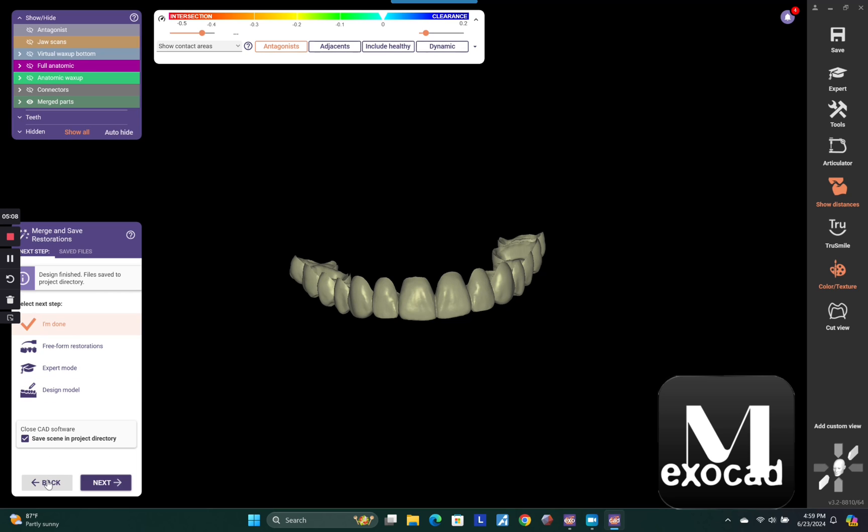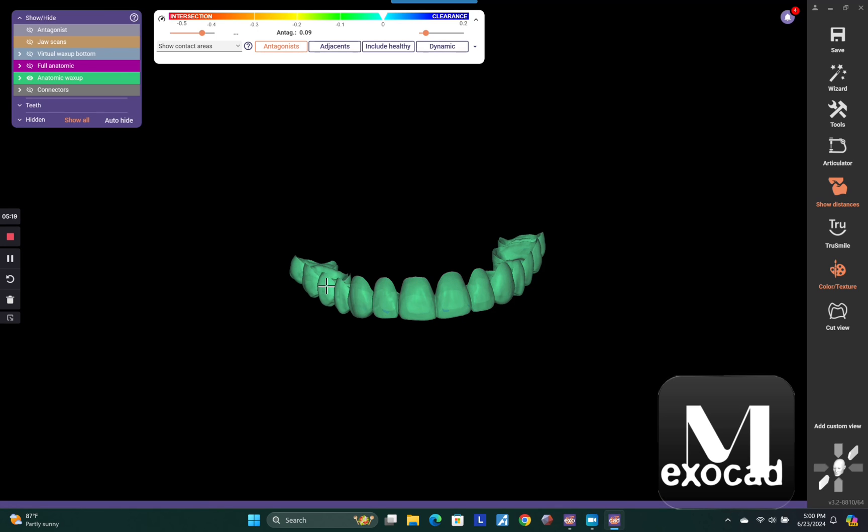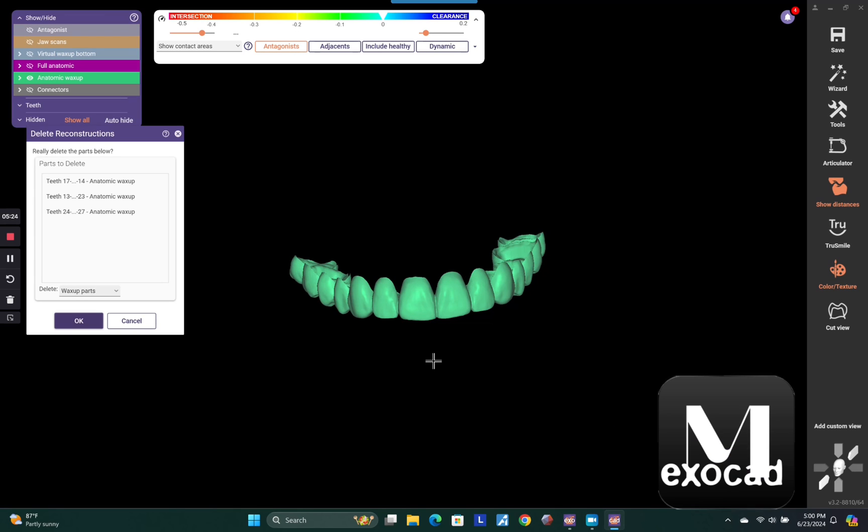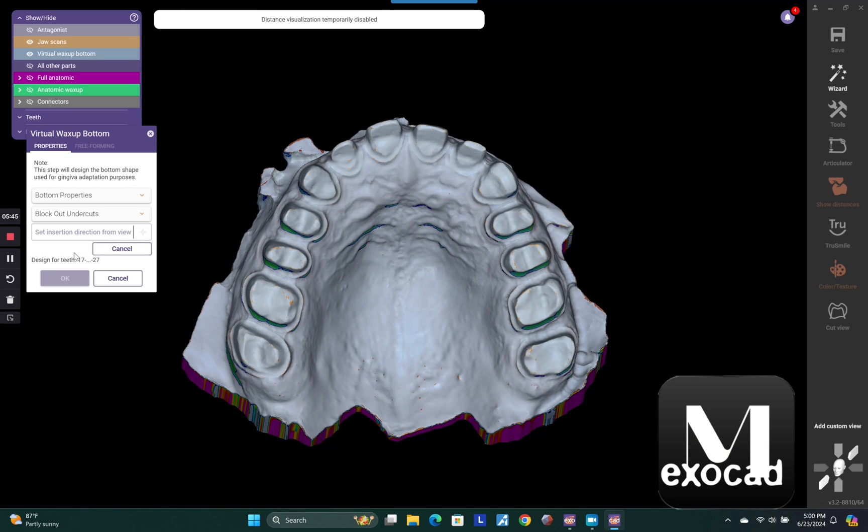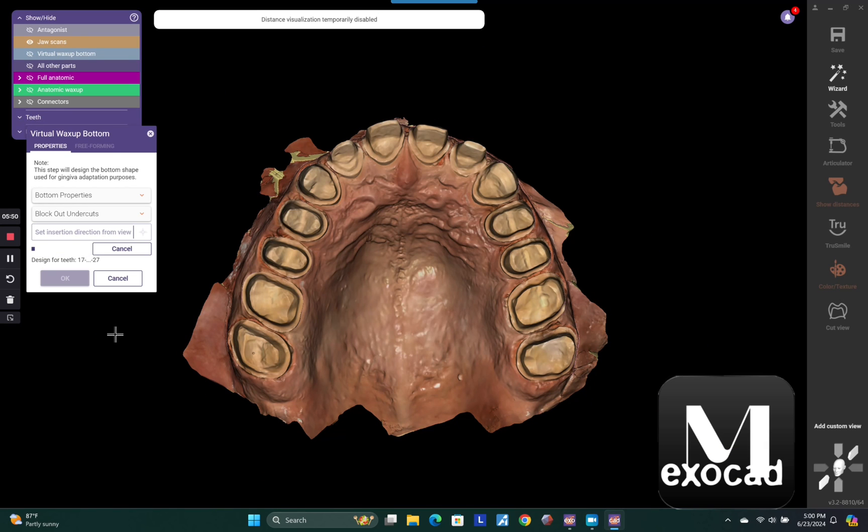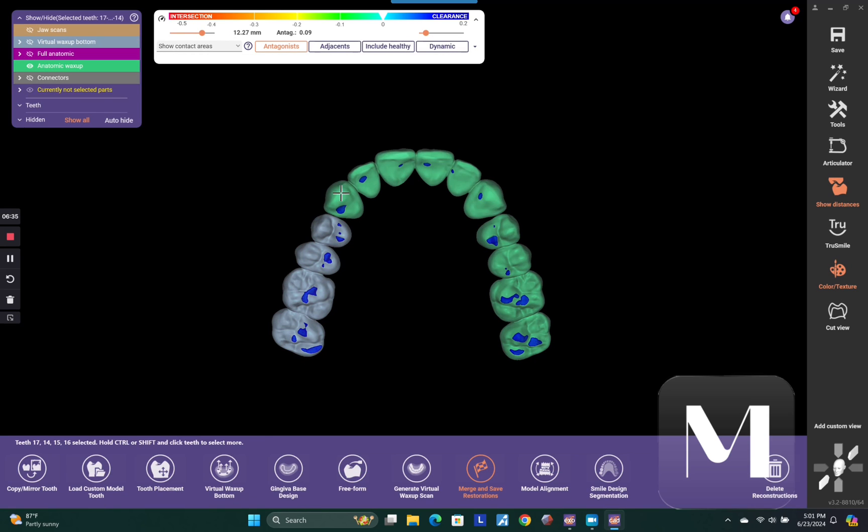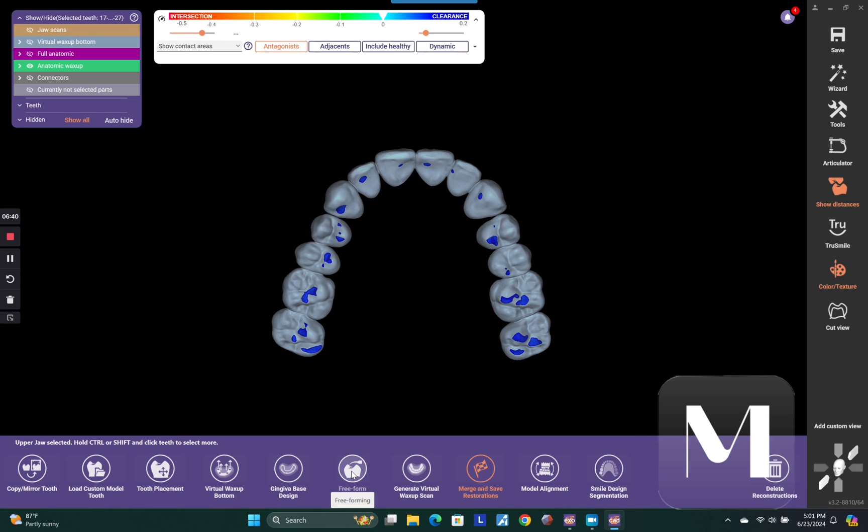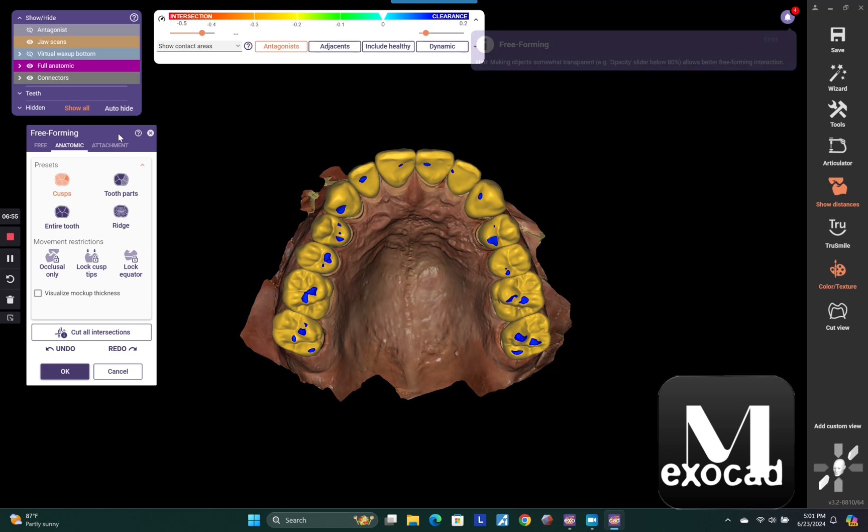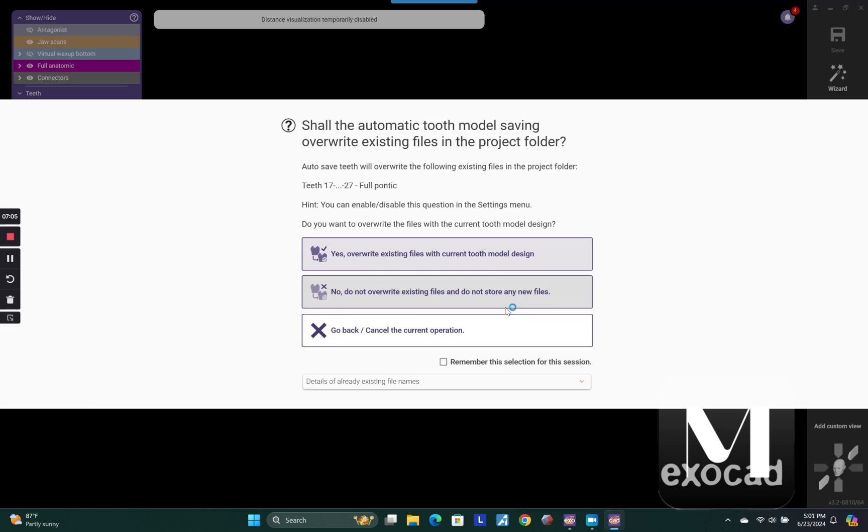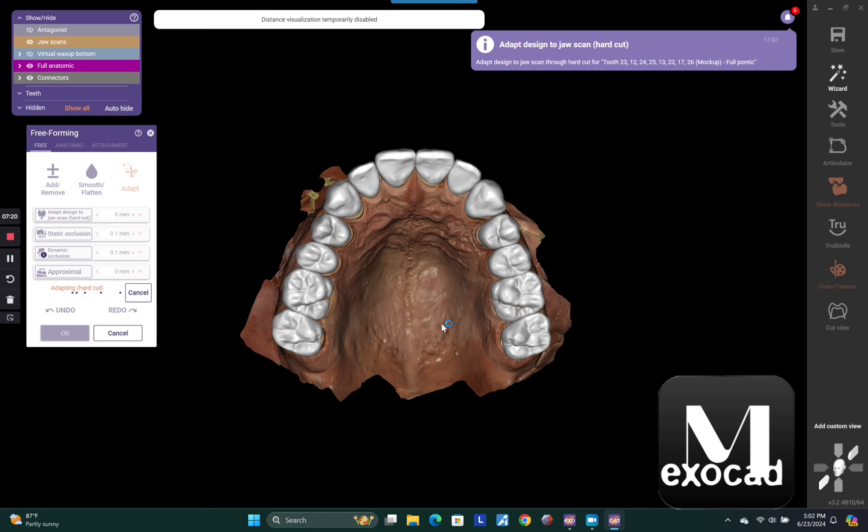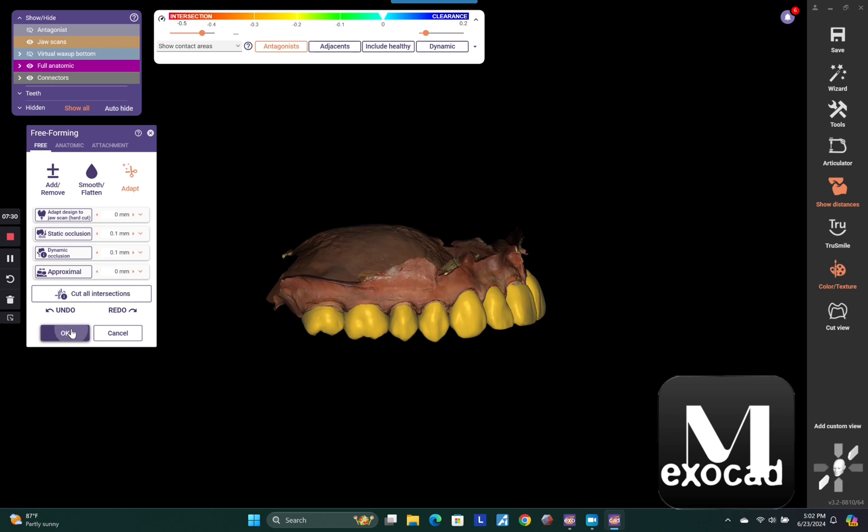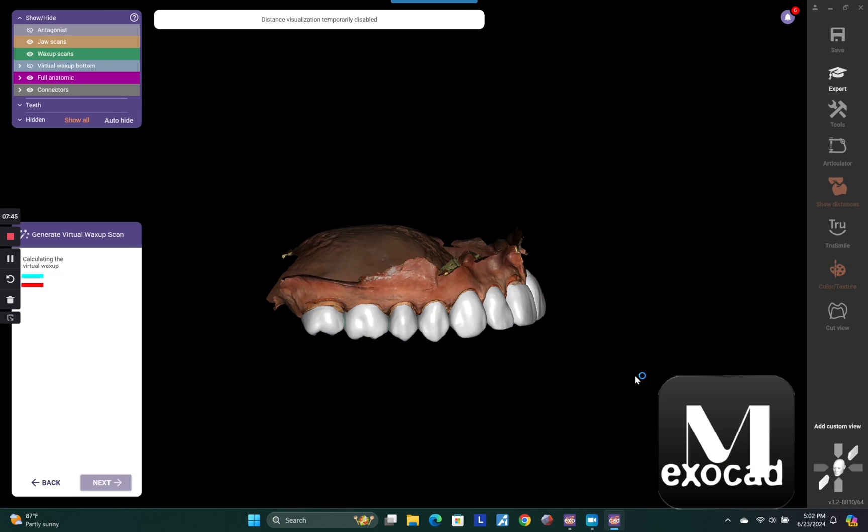And then I could potentially even backtrack here and change the path of insertion for the posterior segments and export those separately with a new path of insertion and have it do a new Boolean cut to a newly generated wax up bottom. So again, though, this is real time right here. So everything was done in under five minutes. And so, you know, it's super efficient to be able to have a temp to the printer, especially if you're in control of your own destiny by designing yourself. Now, if you're not, no big deal. You could get a lab technician to do all this kind of stuff for you. So I'm just showing you now sped up here how I'm going to reset my path of insertion for my posterior segments and then basically redo the same steps that I just told you guys by following the wizard and recutting, deleting my merged parts, deleting my wax up bottom, and then going back. Now with the new path of insertion and recutting my posterior segments here to the new path of insertion, and then I could re-export those separately.